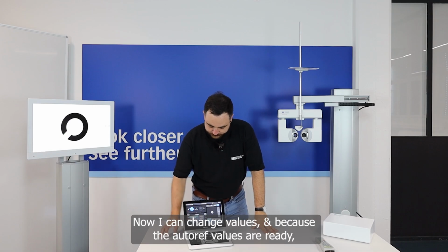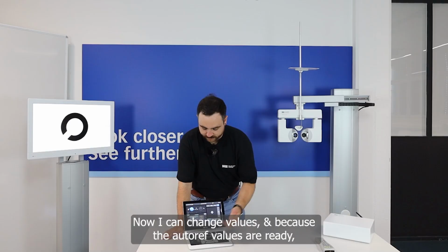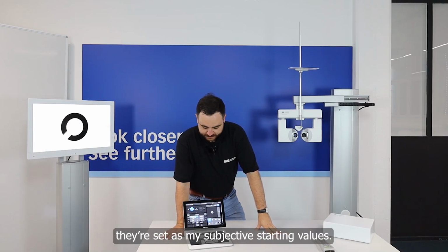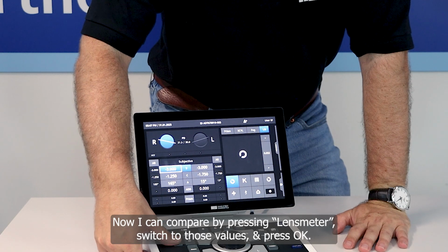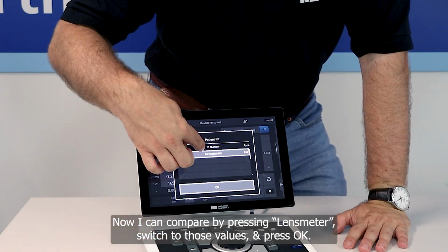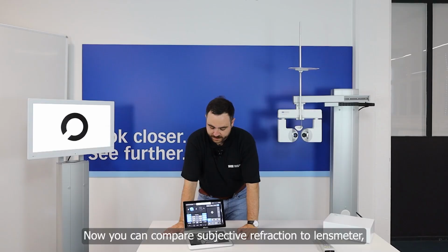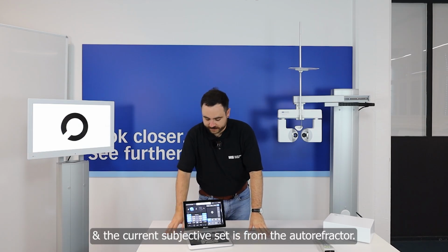Now you can see I can change the values, and the autoref values are now already inserted as my subjective values. Now I can compare the values by pressing on lens meter. Then I can switch to those values, press OK. Now you can compare the subjective refraction to the lens meter, and the subjective refraction is currently our autoref values.